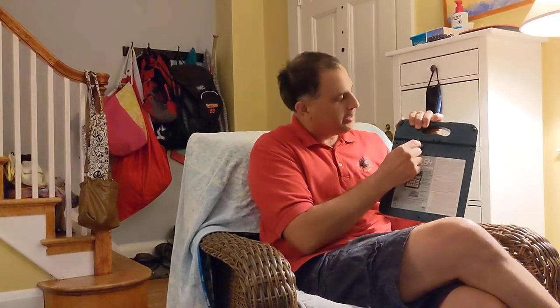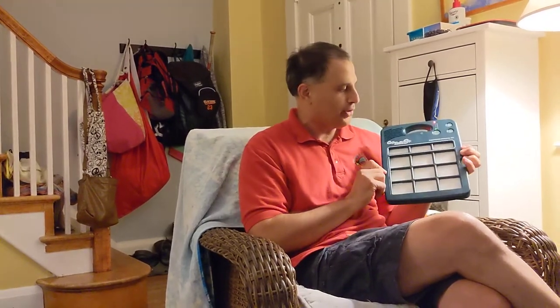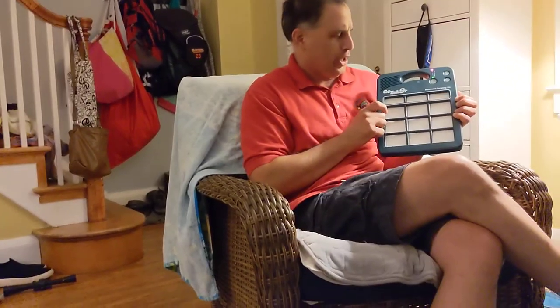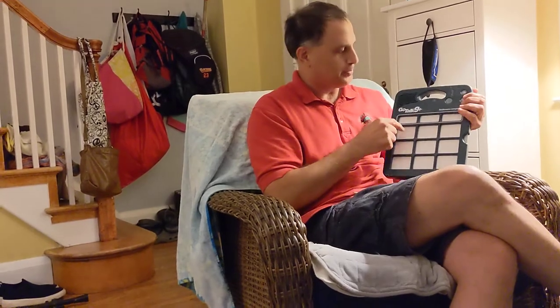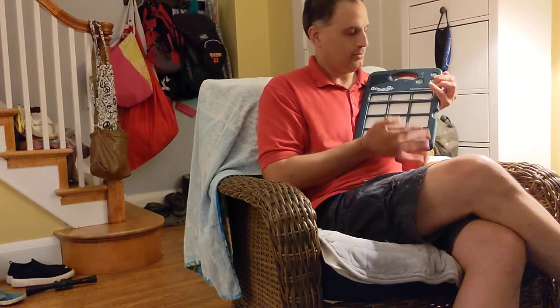And I can go around again — press record, it's ready to record, and I can record my new words. Remember: press to start recording, release, then press and release to stop recording. So, for example: "piano," "mushroom," "up," "down." And now I press record to lock all those in. "Piano." "Mushroom." "Down." See, my words are in there.